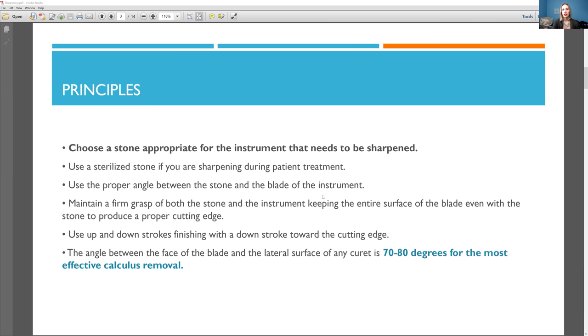And if you sharpen, let's say you have a patient in the chair and you are cleaning the teeth and then you say, okay, well, this instrument's now pretty dull, I have to sharpen like now. You are allowed to do that. So take out your sharpening stone, sharpen, but then make sure to sterilize that stone afterwards, okay?